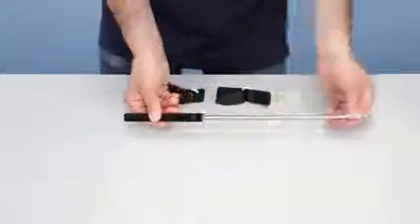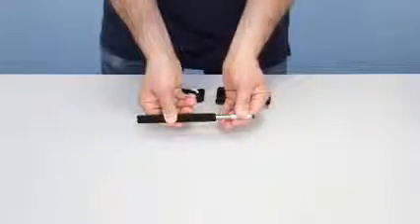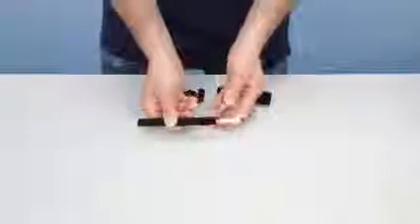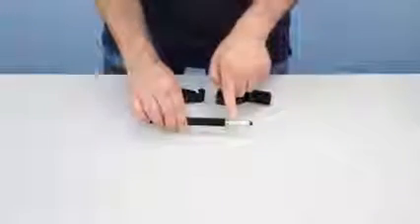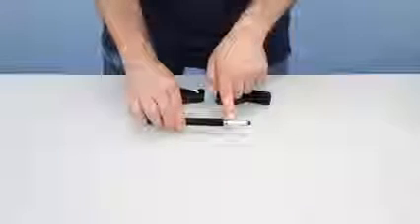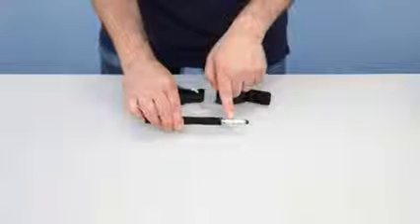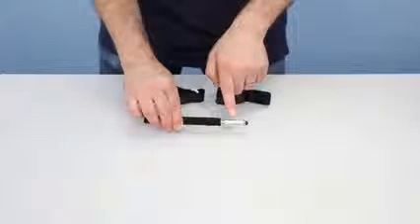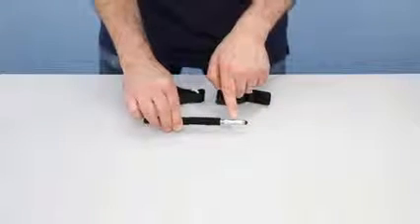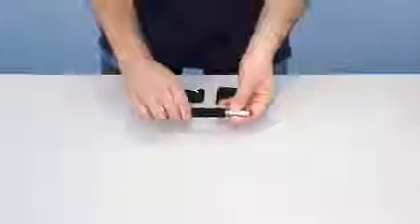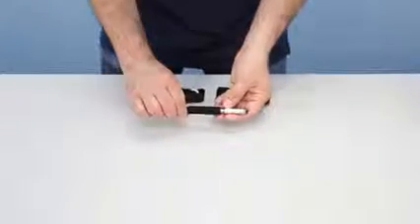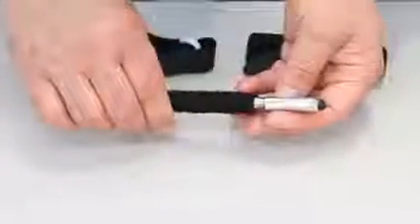The stylus tips are replaceable. We do sell them in a set of five, number 9084. There's a special metallized tape here that you just unpeel when you need to change out the tip.